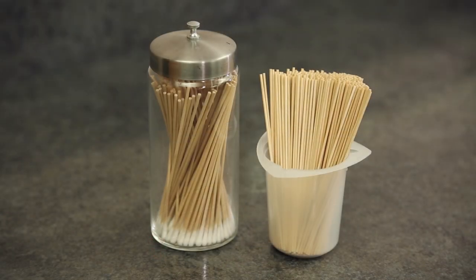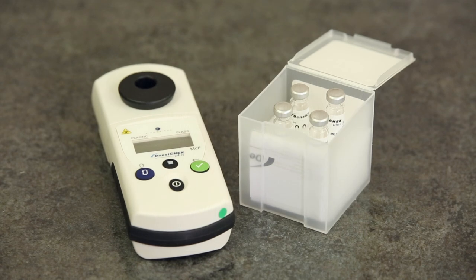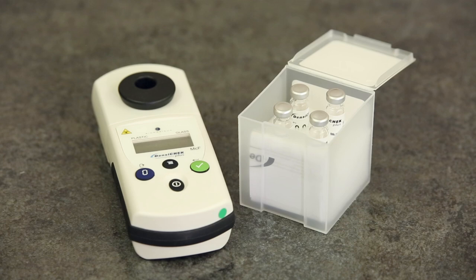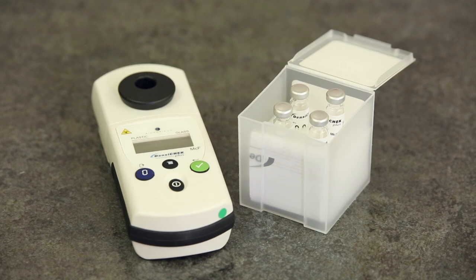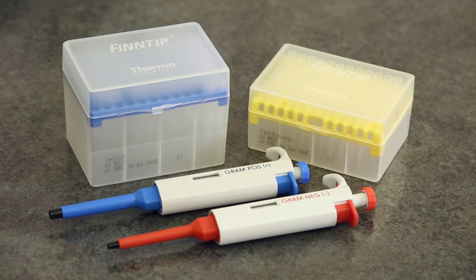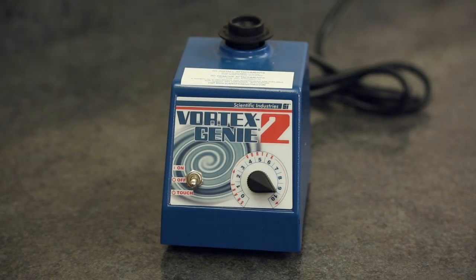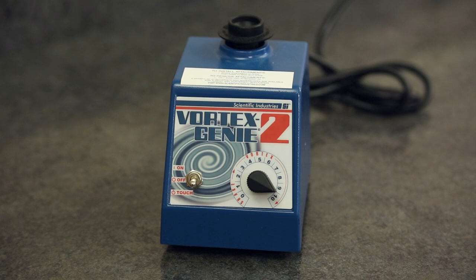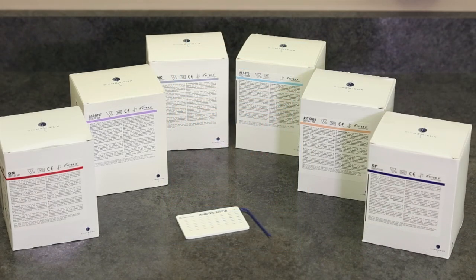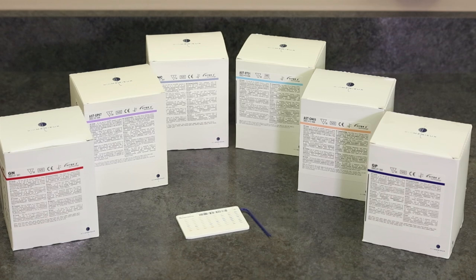Sterile sticks or swabs. The DensiCheck Plus Instrument and Standards Kit, used to measure the optical density of a microorganism suspension. The two fixed-volume pipetters received with the system and pipet tips. A vortex, if necessary, to prepare a homogeneous organism suspension. The number of VITEK-2 test cards, warmed to room temperature, required for setup.